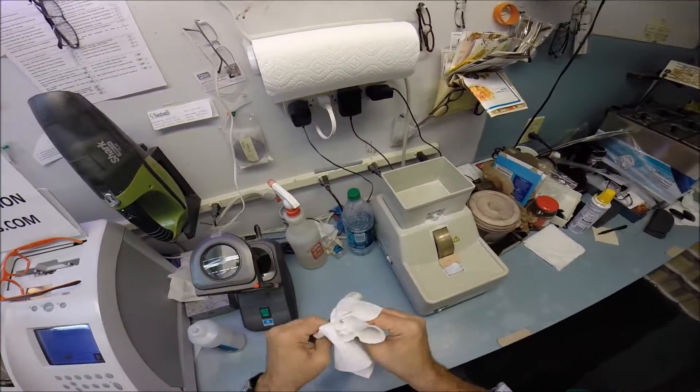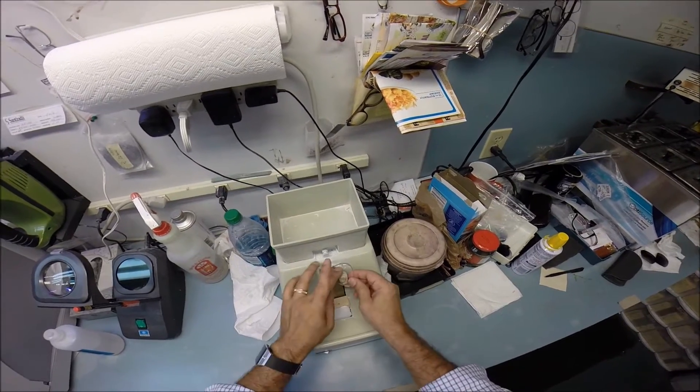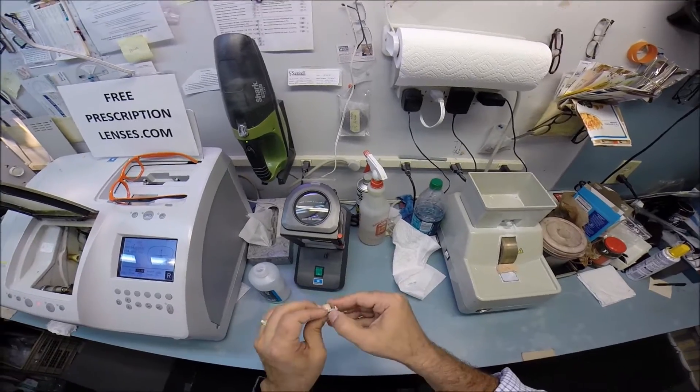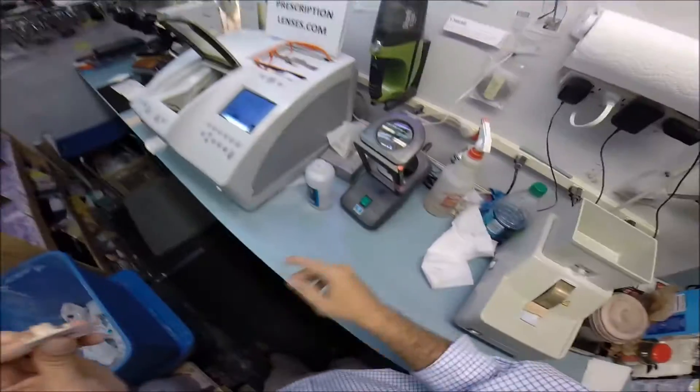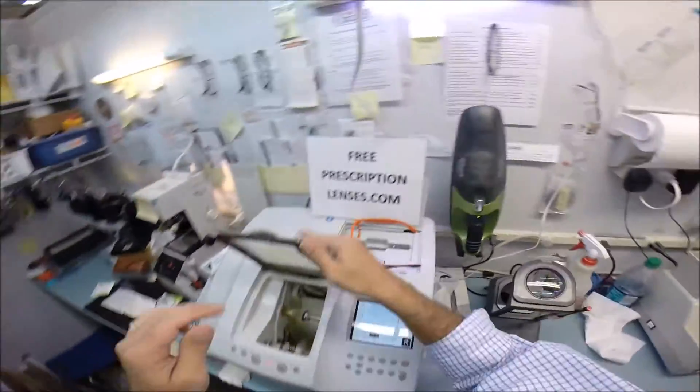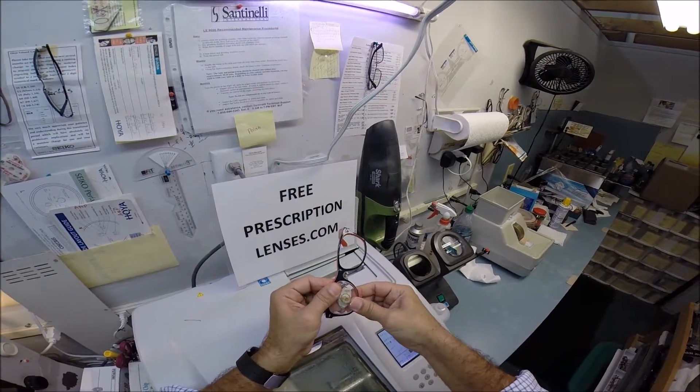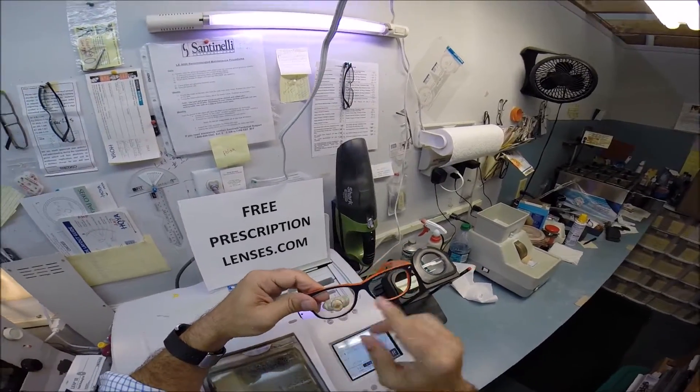So, again, dry your lens off. Back to the hand stone real quick for the safety bevel. Scrape that off with my thumbnail. So, this time I'm just going to let it drop directly on the floor. I'm going to eliminate the middle man, which is the counter. Let it just fall right on the floor. So, I'm going to tuck it in at the outside corner. And then using my thumbs, I press down at the nose. And it actually snaps in this time.